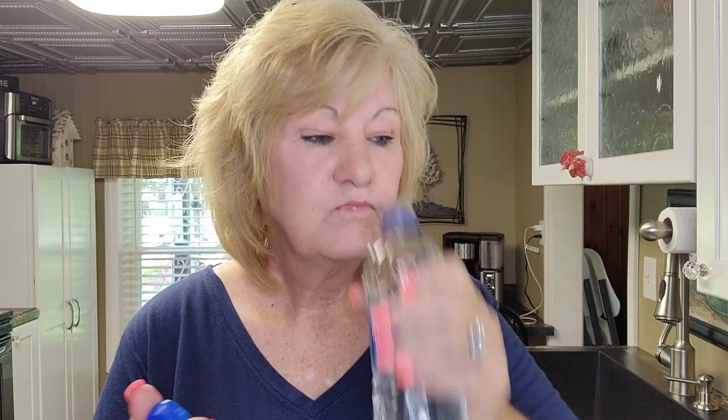Dry the tip off really good, then put your denture in. Wait five to ten minutes — maybe fifteen — before you eat or drink. Don't put your denture in and then immediately drink coffee because you'll ruin what you just did. In my testing phase I even took a small sip of water, because in his video he used some water with it.